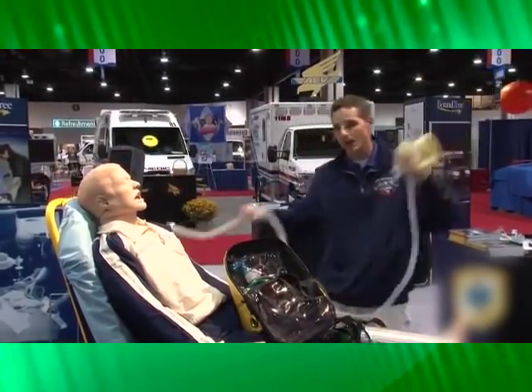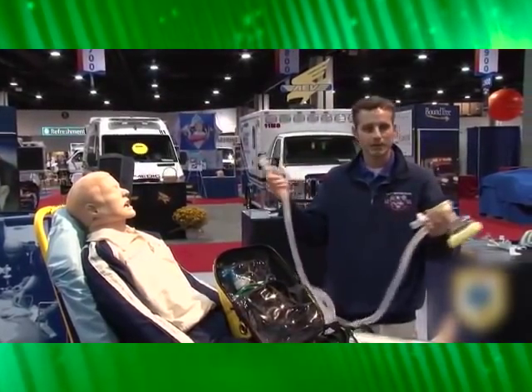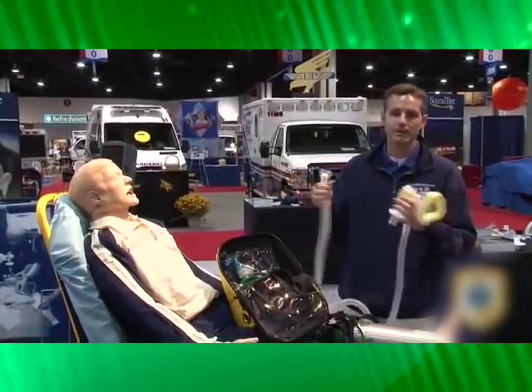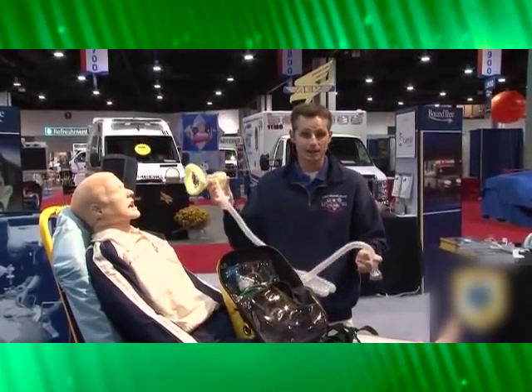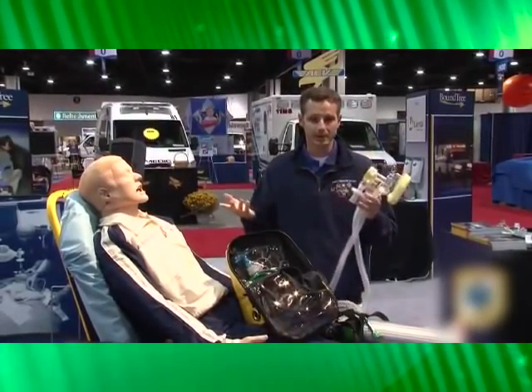The other end of this circuit also includes a bacterial/viral filter, so this protects your equipment from cross-contamination. If you find out after the fact that your patient did have something, you know that your equipment has been protected. Once a patient is completely on the system, from a risk management standpoint, this is very important because it prevents your medics from getting sick.